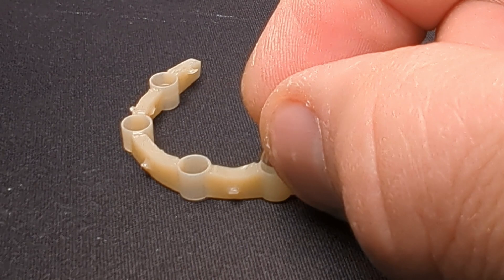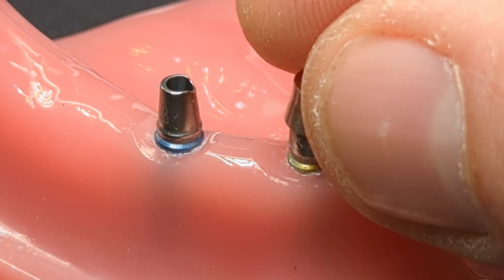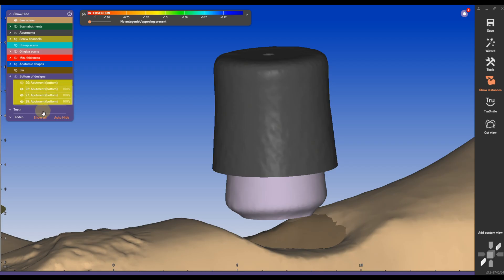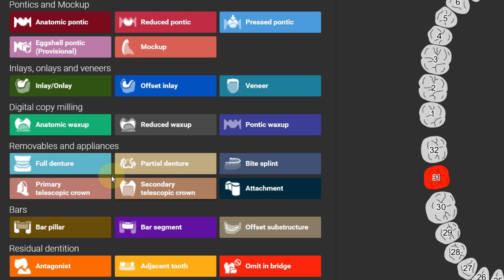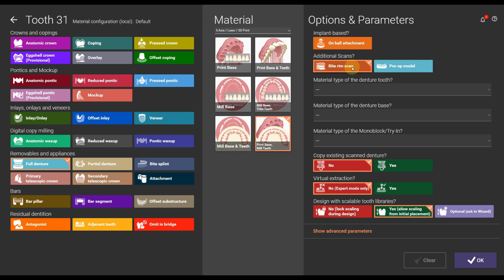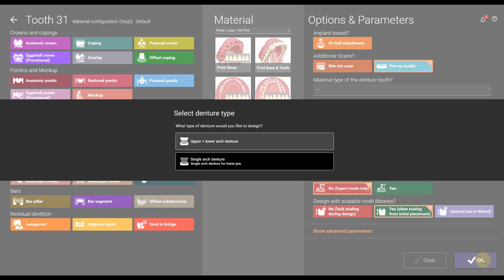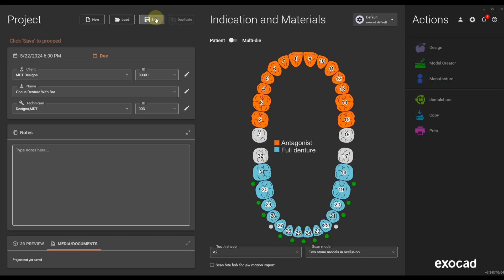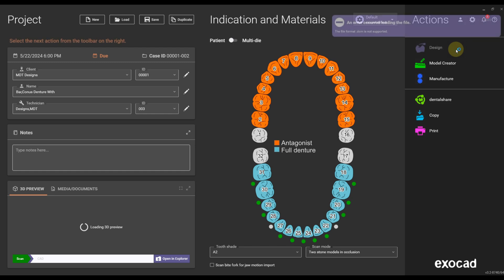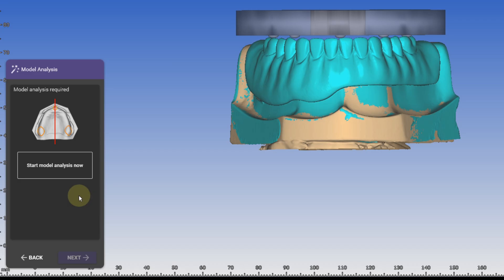Conus all-on-four is a dental prosthesis solution that uses a tapered abutment design to retain a cap on the abutment by surface friction, all with the functional stability of a screw or cement-retained prosthesis. I created four digital design videos in which I explain each design step in detail. So before you convert all your all-on-x cases into Conus cases, there are some indications to observe.